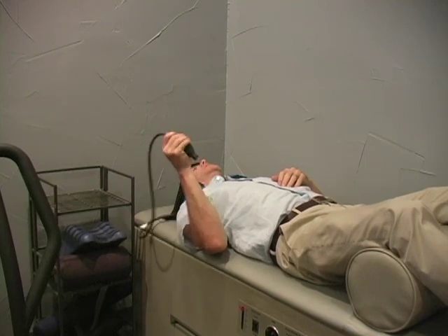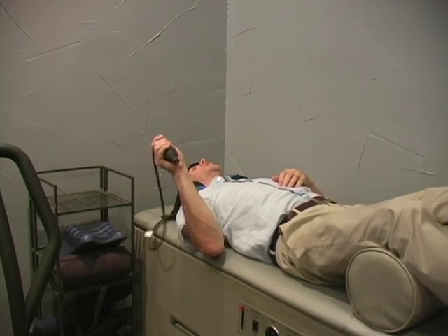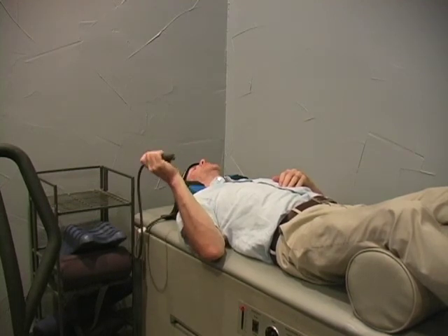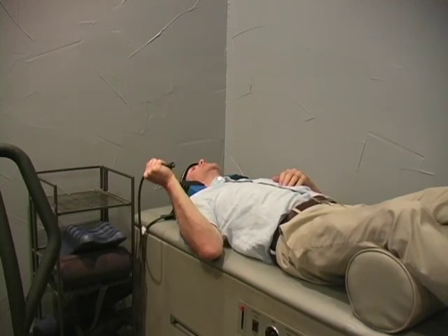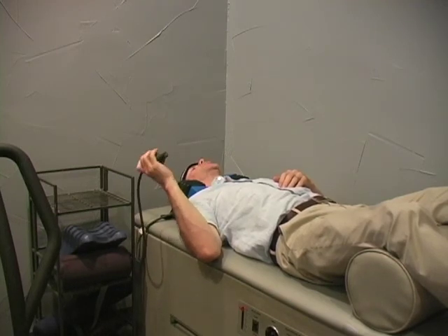Take the bulb, gently tighten the stem clockwise all the way, and then begin pumping. You'll feel a nice stretch of the neck. I like this because it's controlled and comfortable.